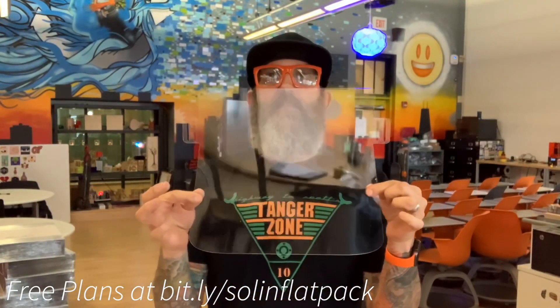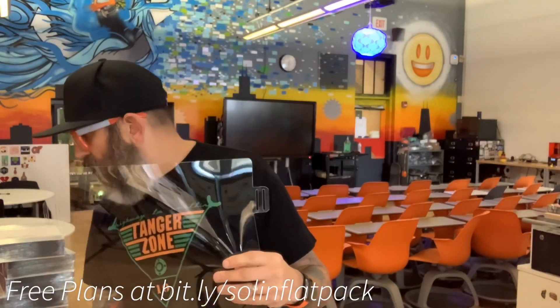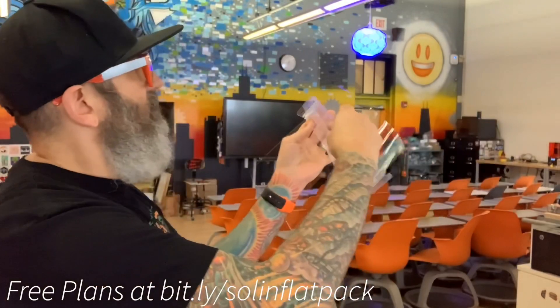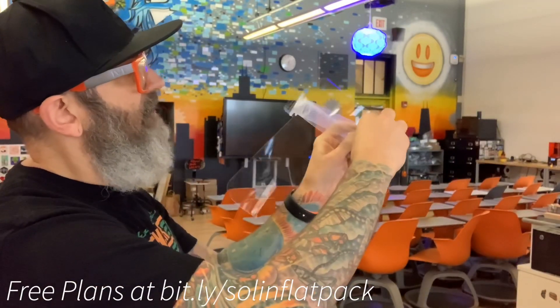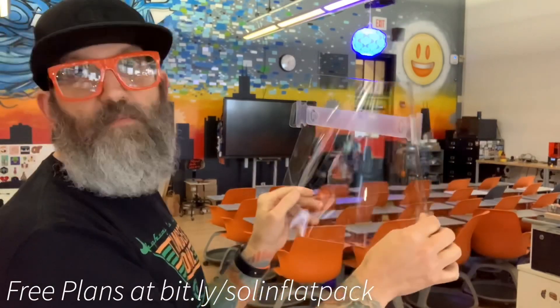So now we have the shield. To assemble the shield, we're going to do the forehead straps first. Take one of the forehead straps and put it through the inside slot, pull past the little holder tabs, and take the other side and pull it through. Then pull them towards each other and hook each of those little tabs into the slots — that completes the forehead bar assembly.